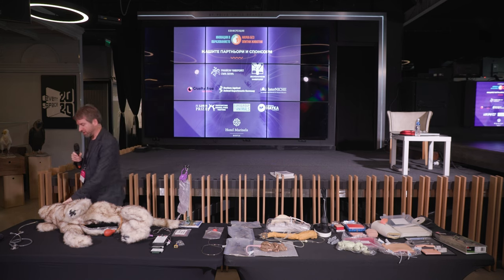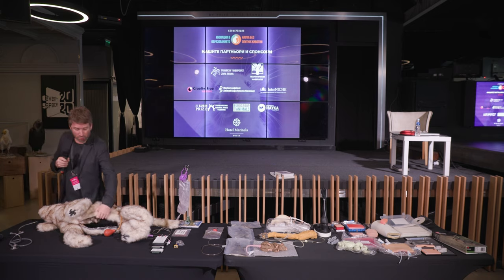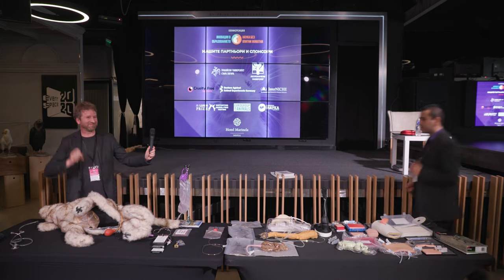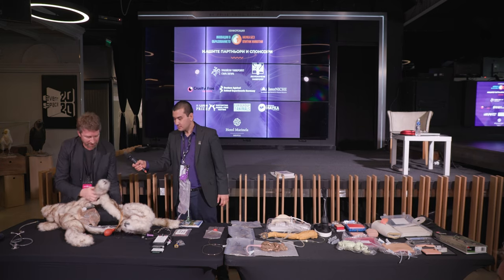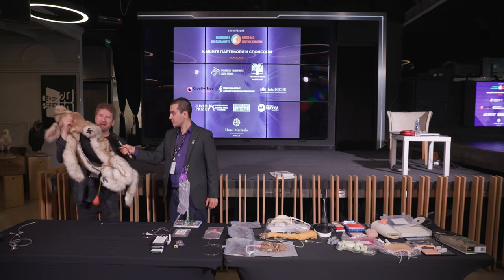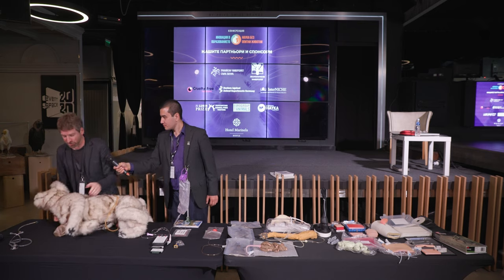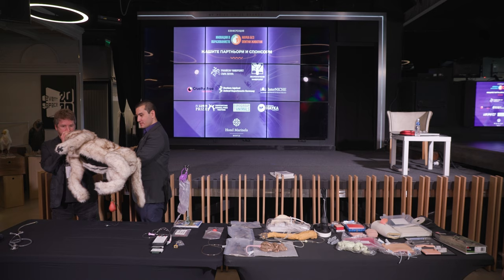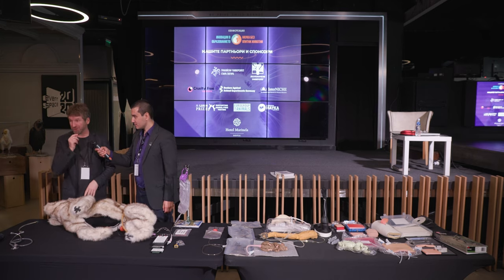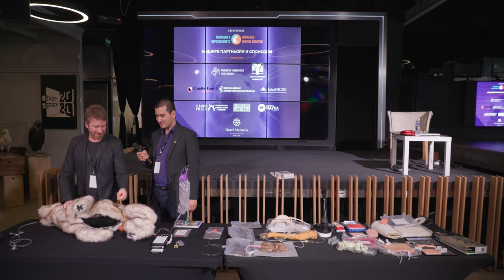Within the chest and the abdomen, there are multiple small loudspeakers. Within the body you have synthetic lungs, and here you can see the synthetic lung. When you do mouth-to-snout resuscitation, you can see the chest rise and fall. You're practicing how to do it well, and you should do it more hygienically than demonstrated here. It's better to learn to do that correctly straight away.